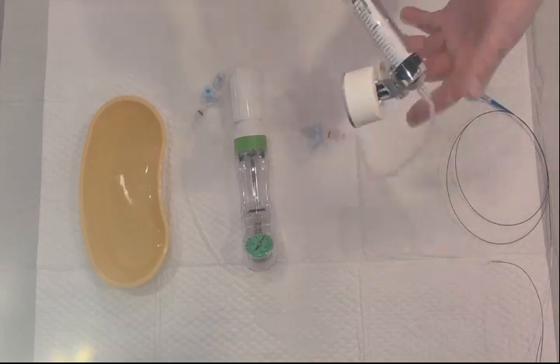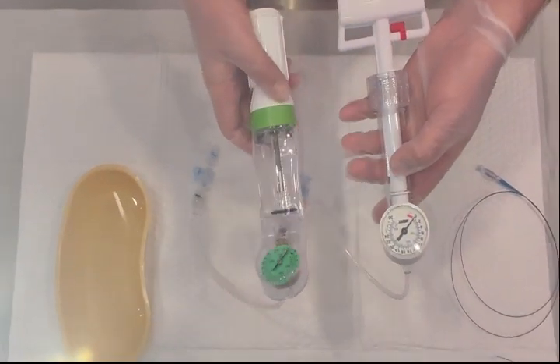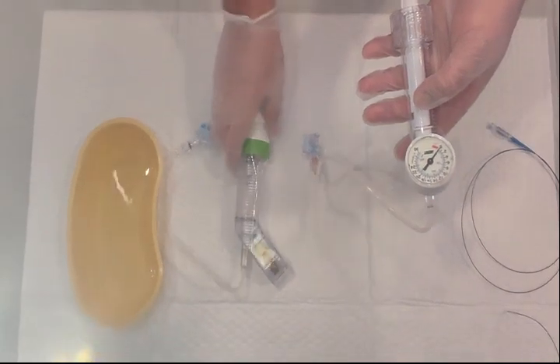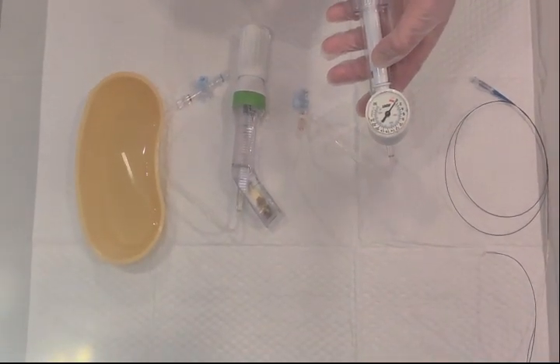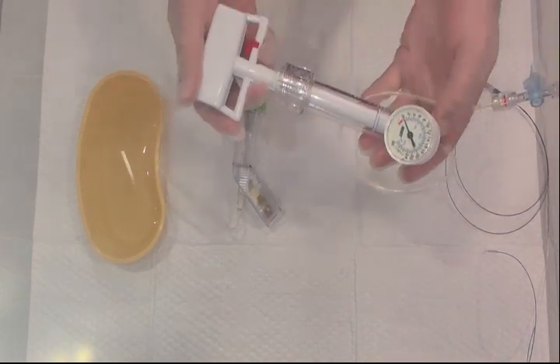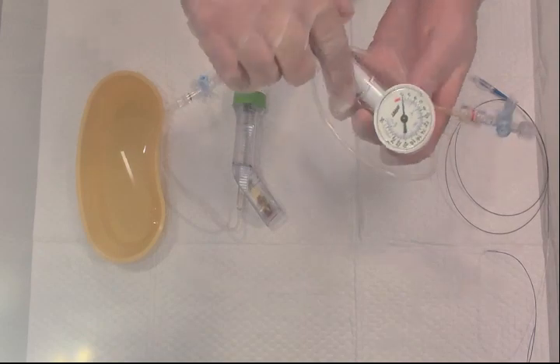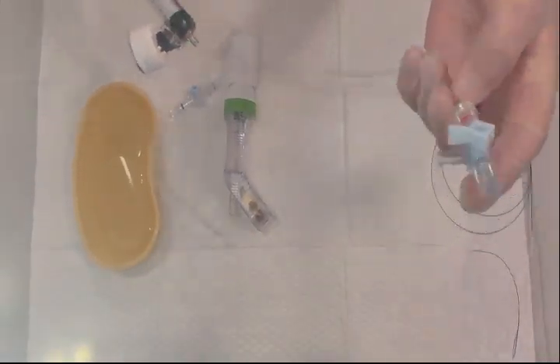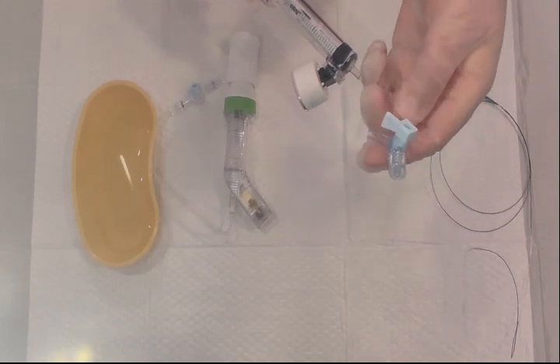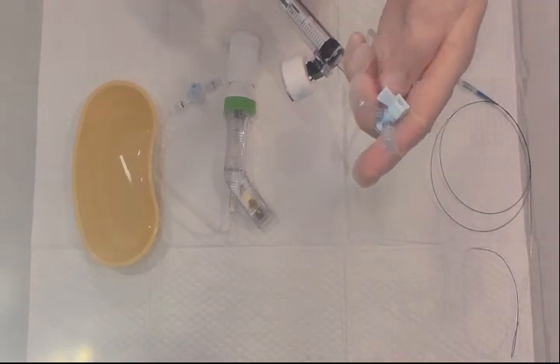There are two different sorts of inflation devices, so I would like to show you one by one because there are different ways to operate them. There is a piston, a pressure meter, and a luer extension tube. There is also a three-way stopcock, which is used for removing air to make fluid-to-fluid contact.